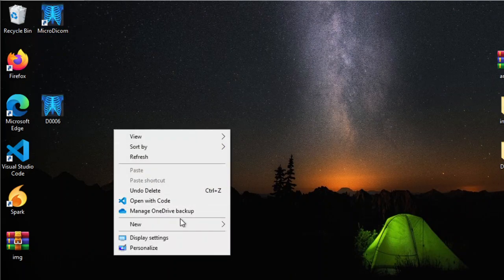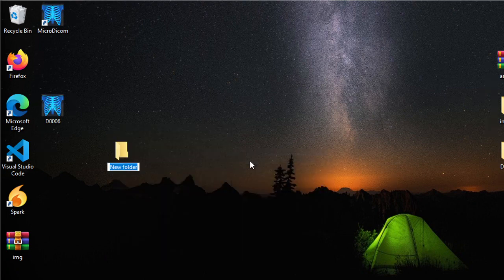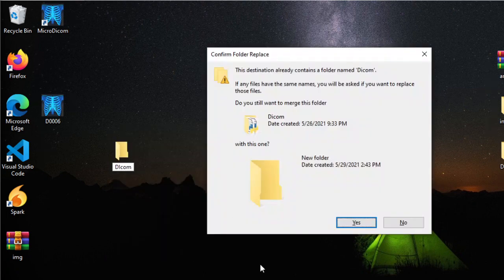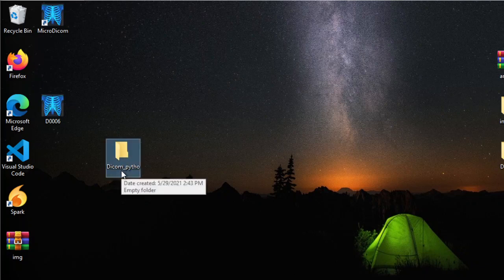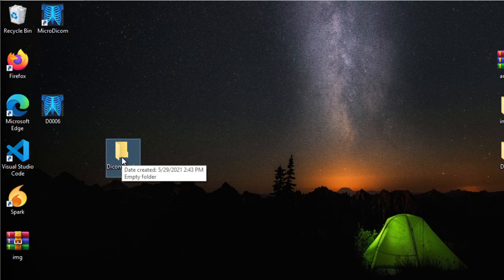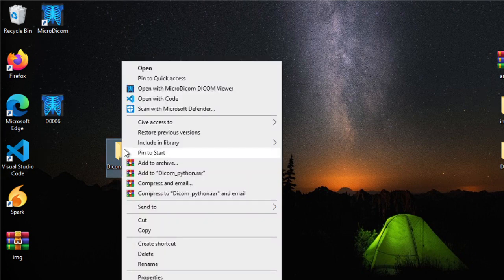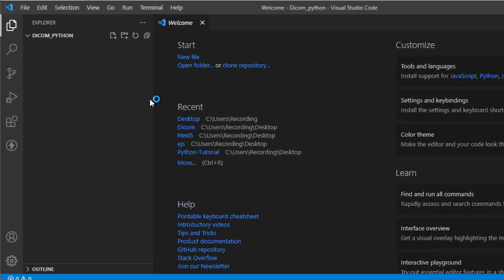To start, I'm going to create a new folder here called DICOM. I'm going to name this as DICOM Python files. For the application I'm going to use, I'll be using VS Code. Please take note, you can use any IDE as long as Python is installed and a virtual environment is set up. You can also use Jupyter for this — it doesn't matter, as long as there is Python, this should also work.